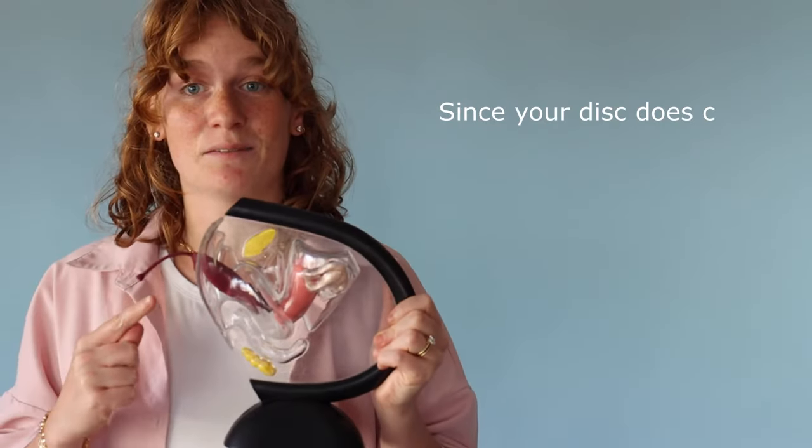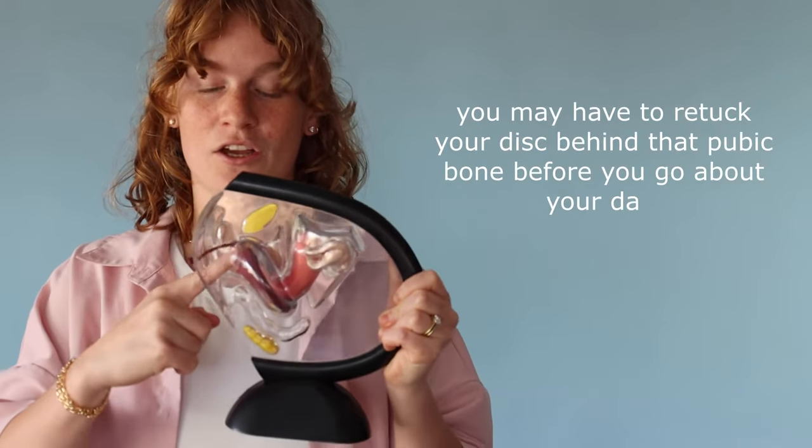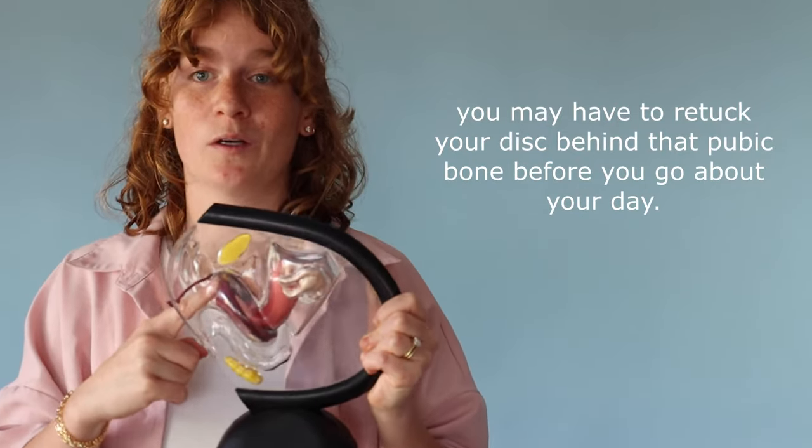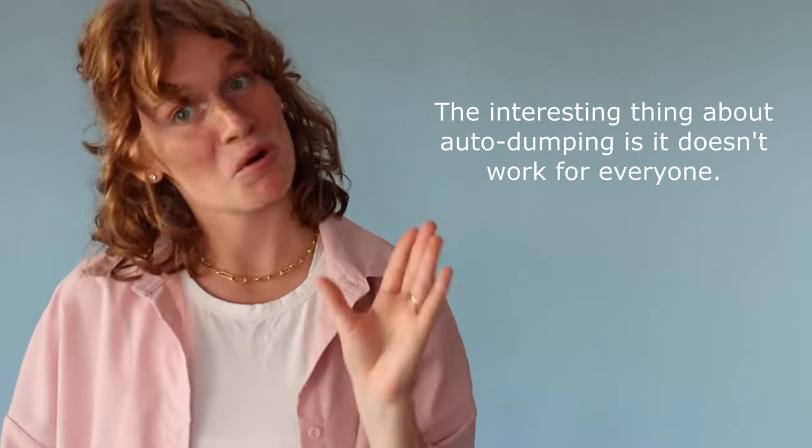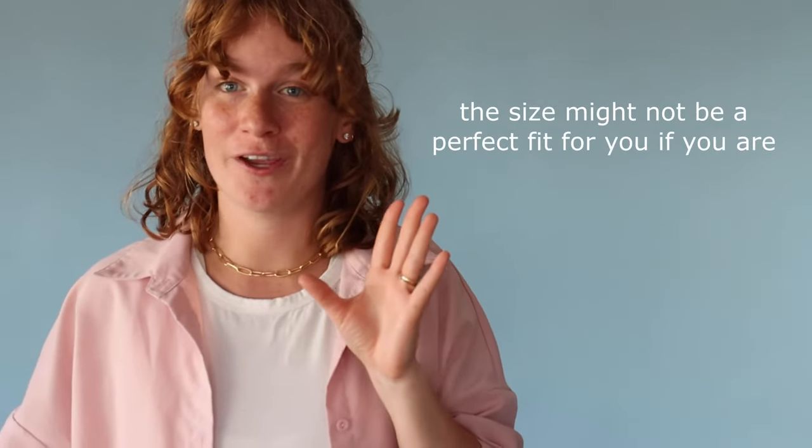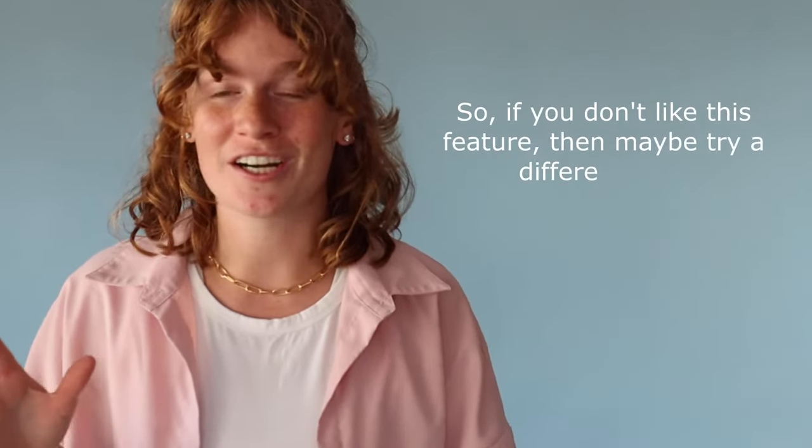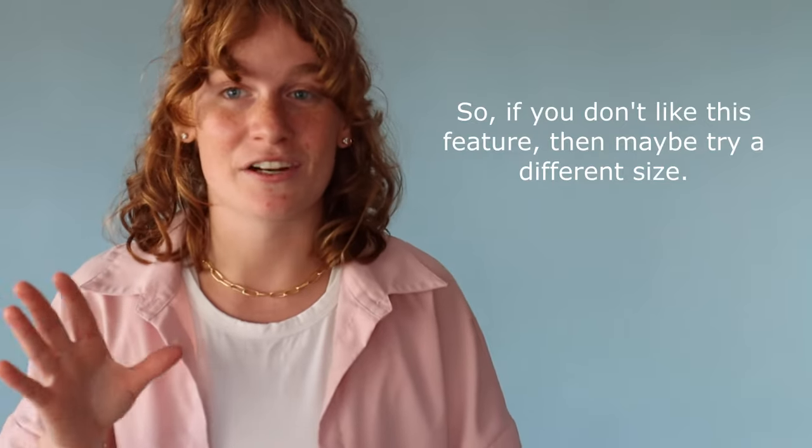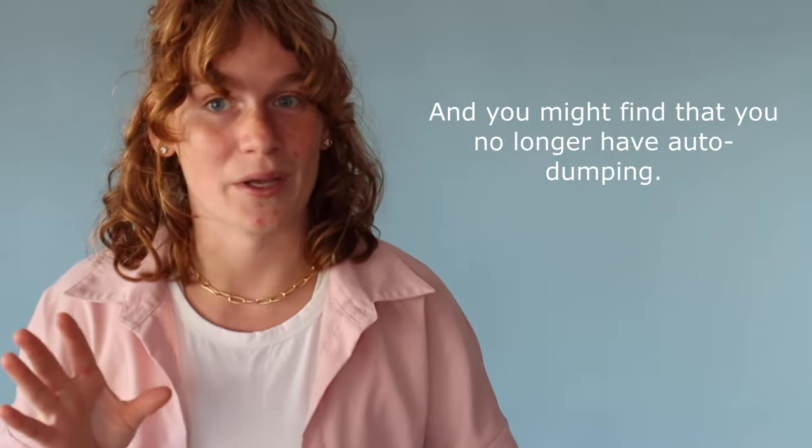Since your disc does come slightly untucked you may have to re-tuck your disc behind that pubic bone before you go about your day. Now the interesting part about auto dumping is it doesn't work for everyone. So it's kind of like the size might not be a perfect fit for you if you're auto dumping which means it's coming untucked. So if you don't like this feature then maybe try a different size and you might find that you no longer have auto dumping.